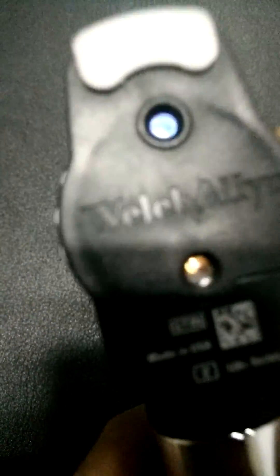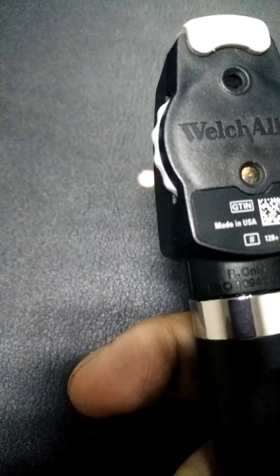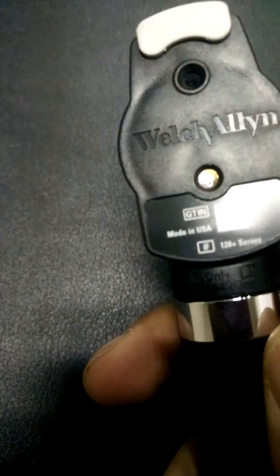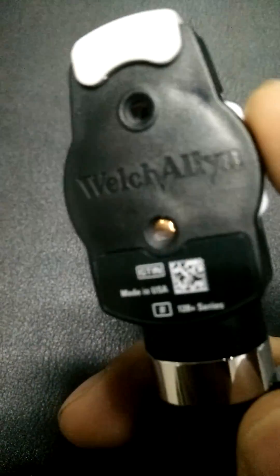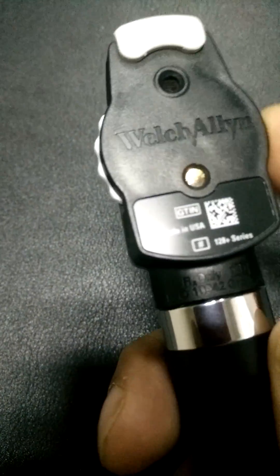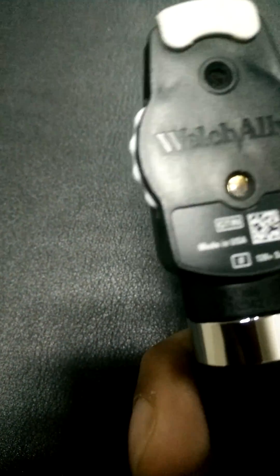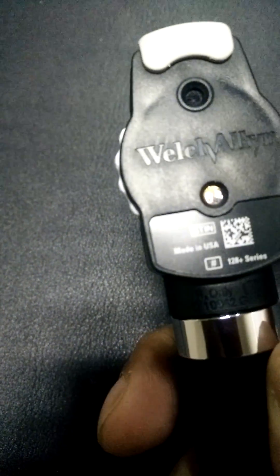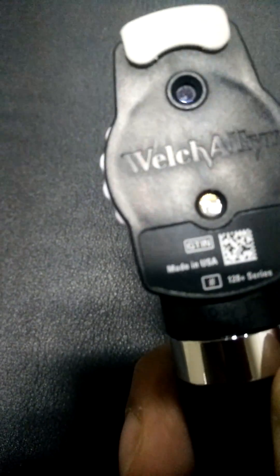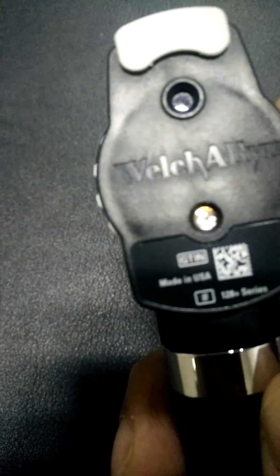Now let's take a look at the diopter settings. The diopter settings start from zero and go up to plus 20 and minus 20. So if you are trying to see something in the anterior chamber, you would probably want to push the diopter up into the positive settings.